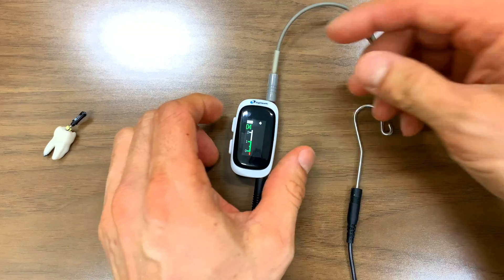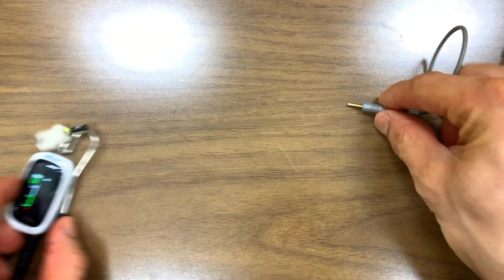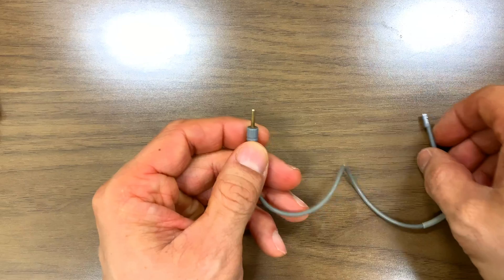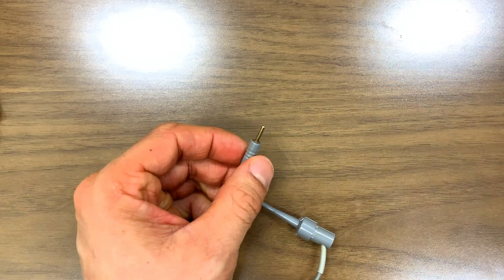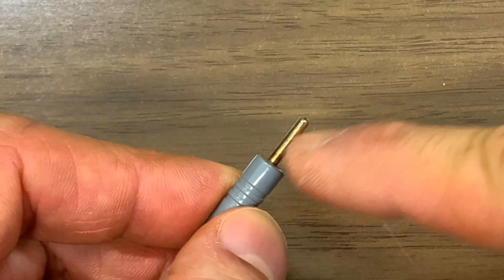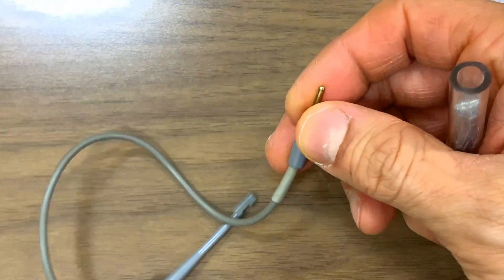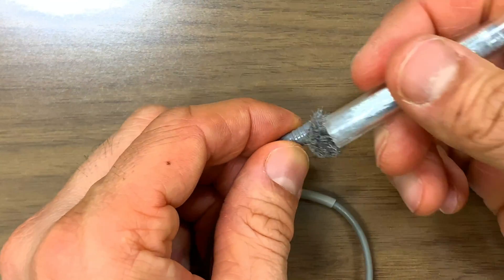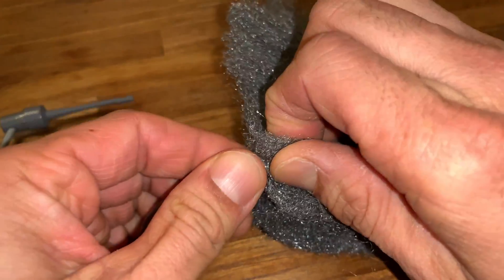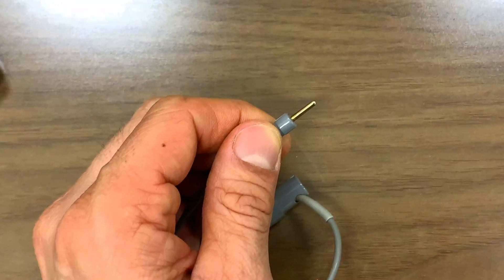This takes five seconds. One of the common problems that will prevent connectivity — if your batteries are low, that's what it is — but one of the main issues is that this file clip gets sterilized probably half a million times in its lifetime, and this little brass connector builds up tarnish. What happens is it doesn't connect well with your apex locator. So what you can do is just take a burr brush, steel wool, or any type of metal abrasive and clean it off.